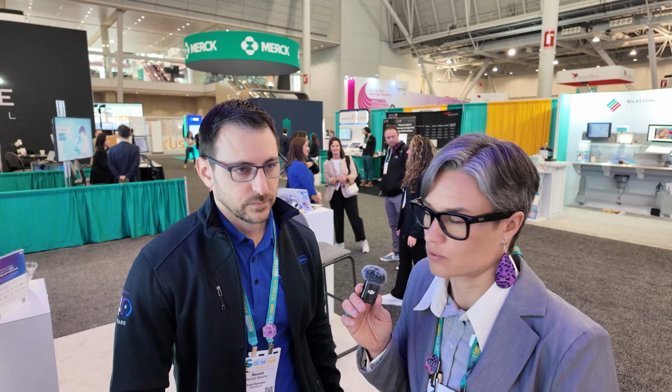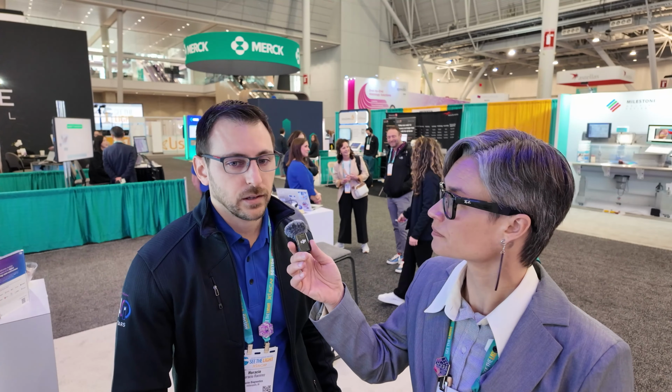What are the use cases for this scanner? One thing that comes to my mind, and tell me if I'm totally off, is because you are cloud-based and you can assemble those cases without anybody interfering, that would be a case for a central lab with remote pathologists that could just work from wherever. Like a hub and spoke solution. Yeah, of course. The system can accommodate any solution that the customer wants.